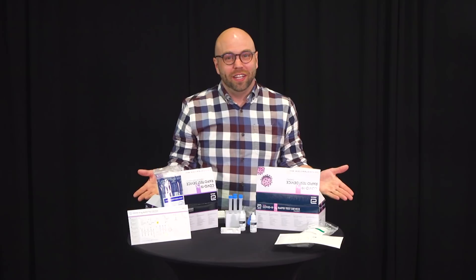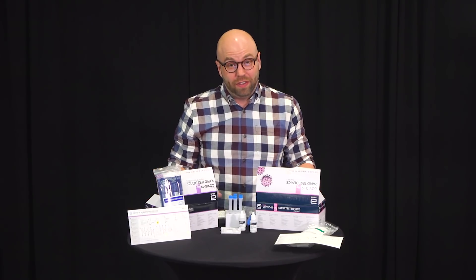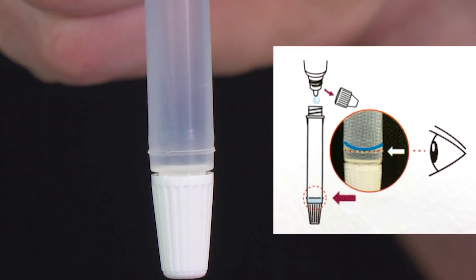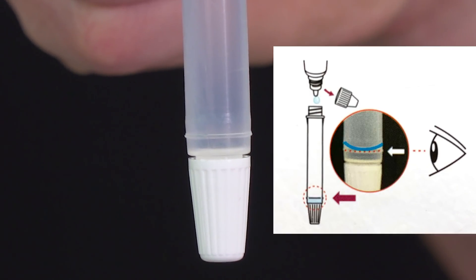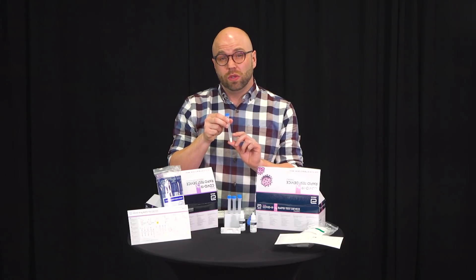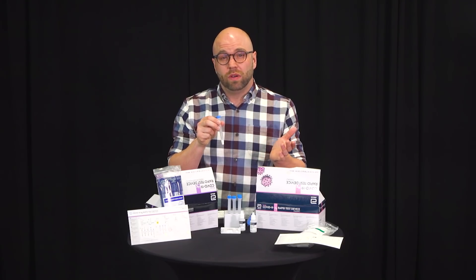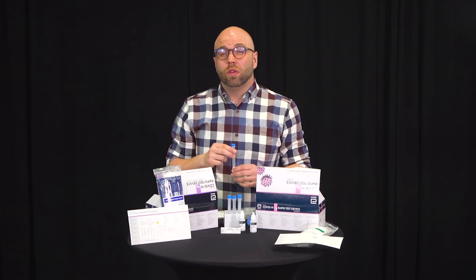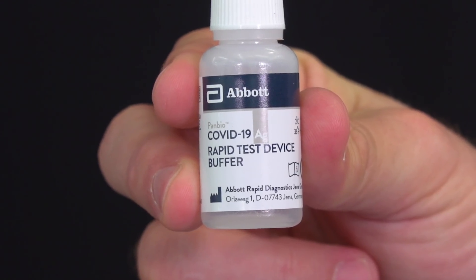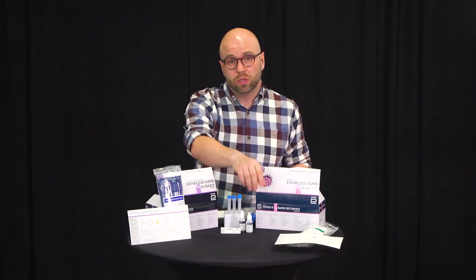So let's get into it. You'll receive an allotment of vials. The first thing you'll do is note that the vial has a line at the bottom — do not fill the buffering agent above or below that line. Fill the vial directly to the line. It should only take 10 to 12 drops to do that. You will have only received one bottle of buffering agent for 25 tests, and that should be plenty to do all 25 tests.